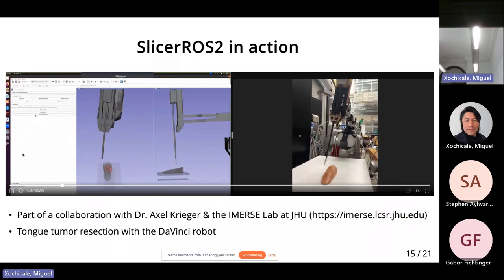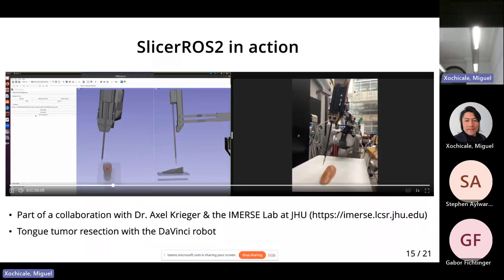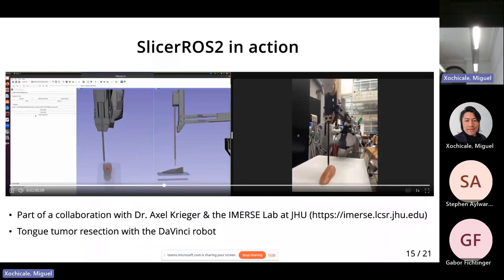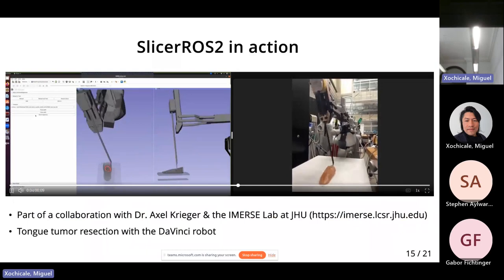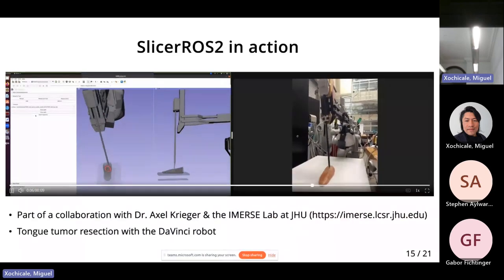Aside from this visualization and loading quickly, what we've seen today is that Slicer can be used for image-guided therapy applications. This one in particular is something we're working on with Dr. Krieger's group at Hopkins, which is tongue tumor resection with a robot. Here you can see we've defined a path based on pre-operative imaging around a tumor, and we're actually sending the robot along that trajectory. A little underwhelming, but trust me — this was very hard to do before.